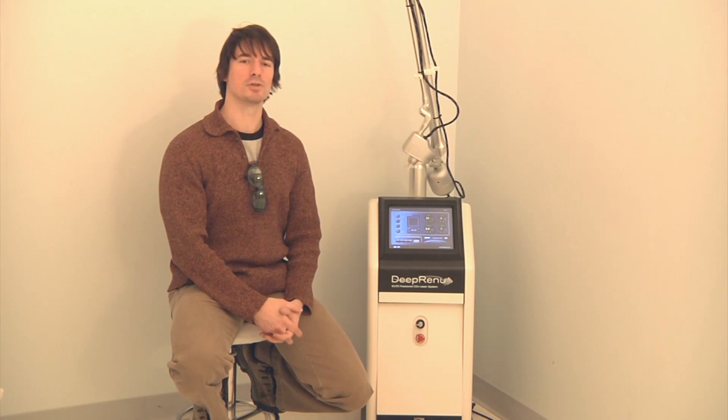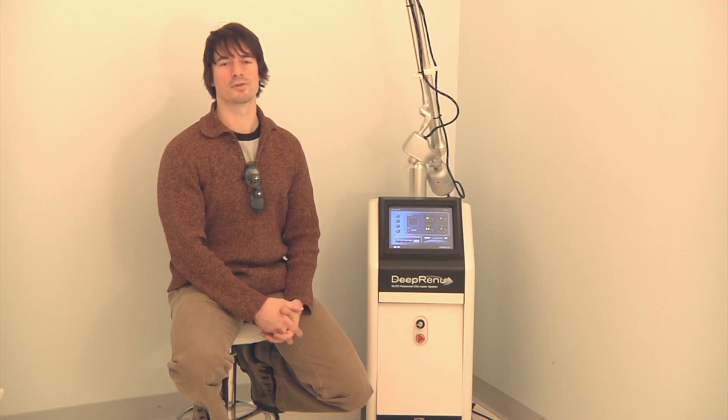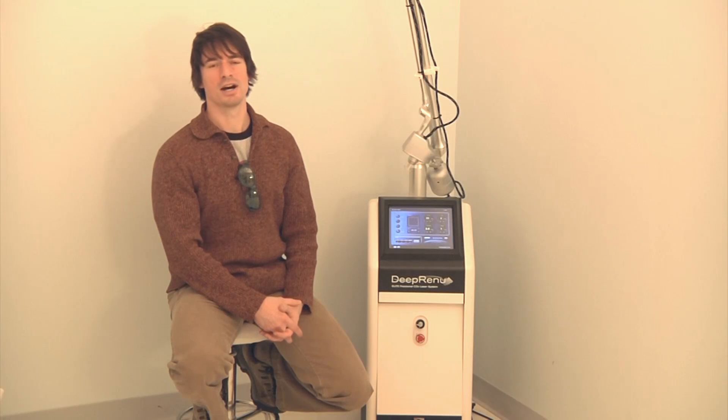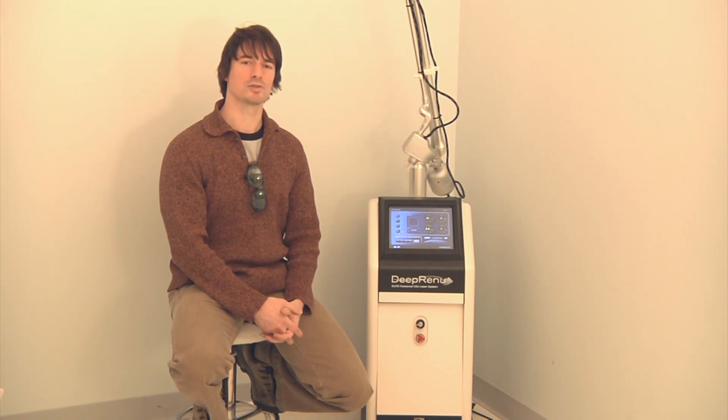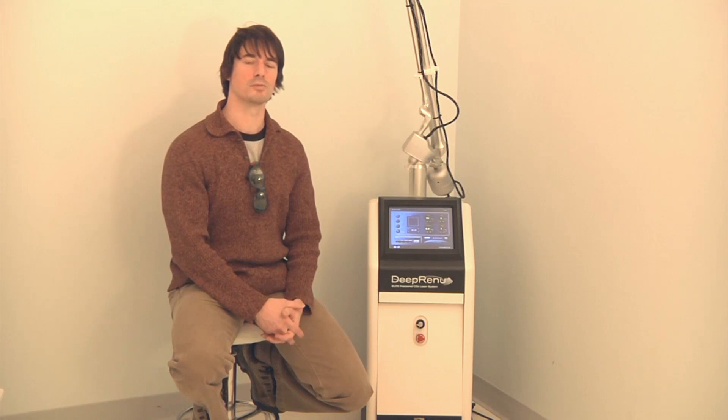CO2 lasers have been used in medicine for many years for a variety of indications, most notably surgical applications, which include soft tissue surgeries, as well as the treatment of endometriosis, and the removal of tumors.